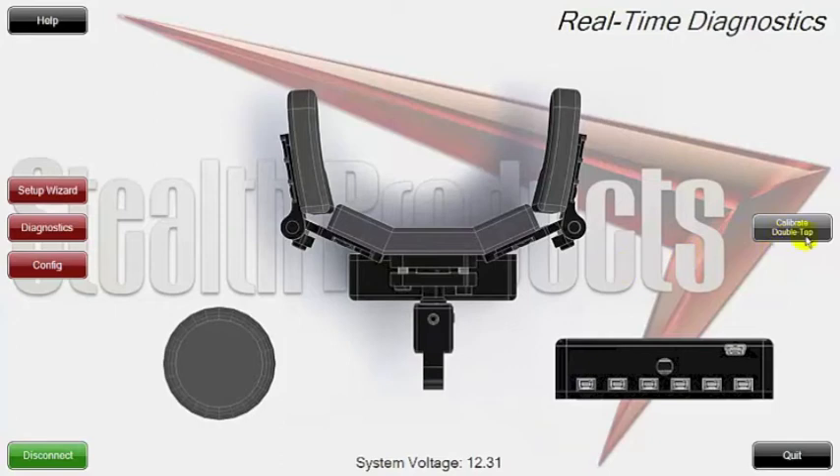There's also something here to calibrate double tap, which we're going to talk about once we get into the configuration mode. The double tap is really configuring your mode change reset — it could be a mechanical switch or a proximity switch. We're able to calibrate the time that you need to do a double hit, which on the Quantum chairs allows you to do a double hit to get into different types of modes instead of a single one, and also set the time elapsed before it actually does that feature.